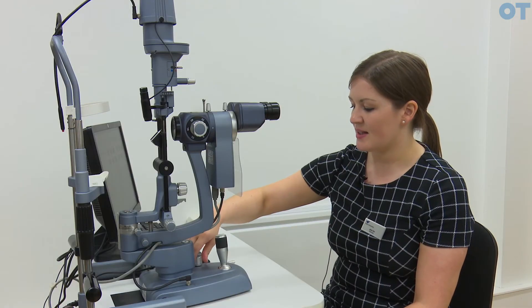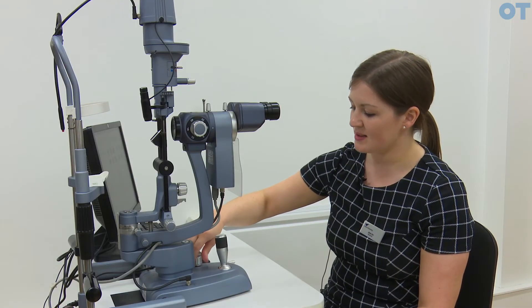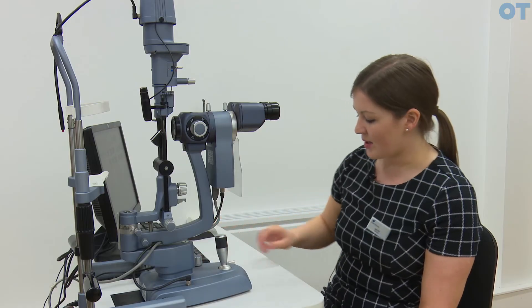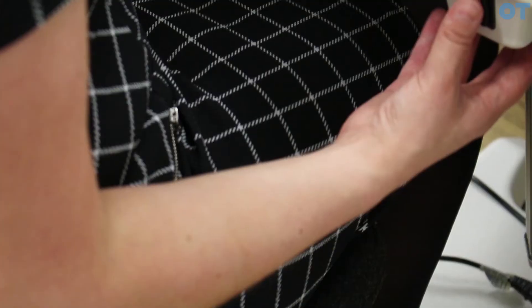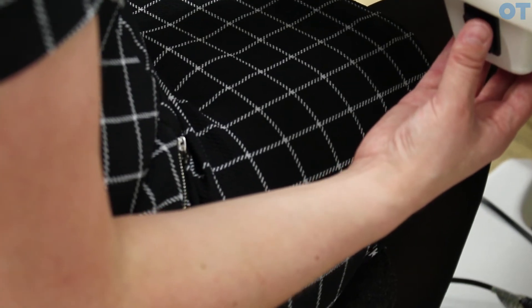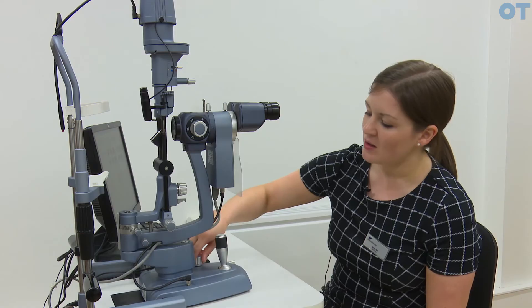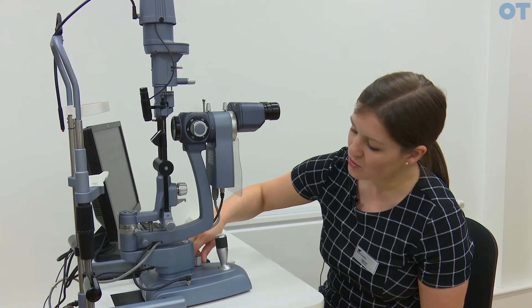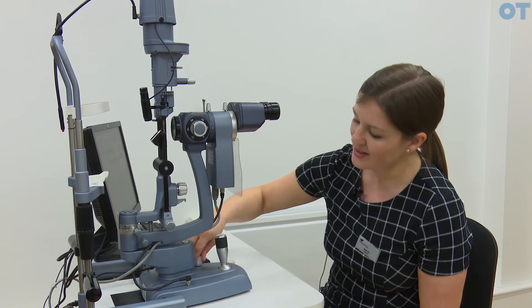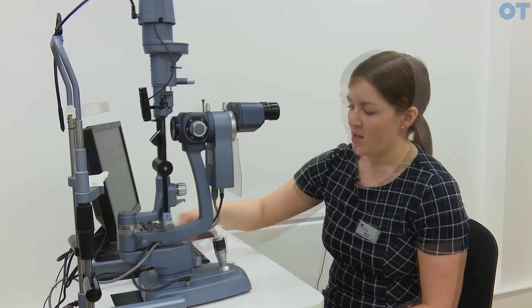We have a rheostat here which controls the brightness, and some slit lamps also have a universal brightness control on the table, but fine illumination control and brightness control is through the rheostat on the instrument itself.